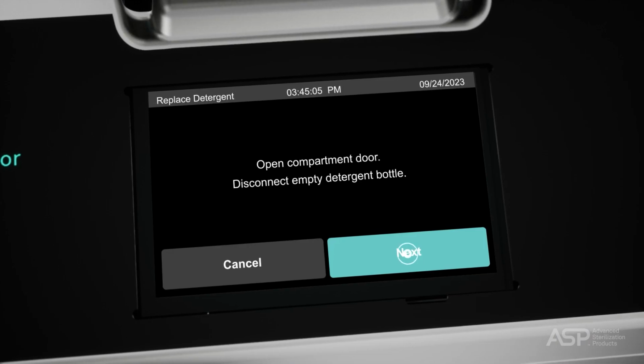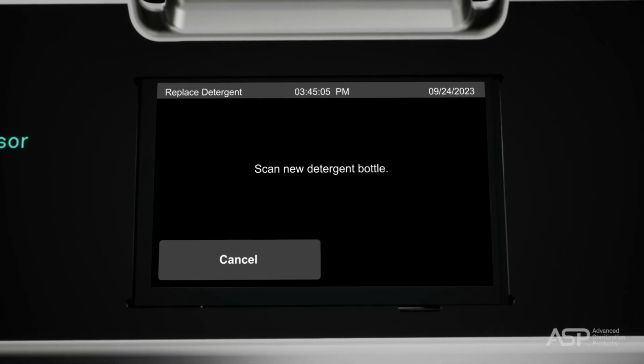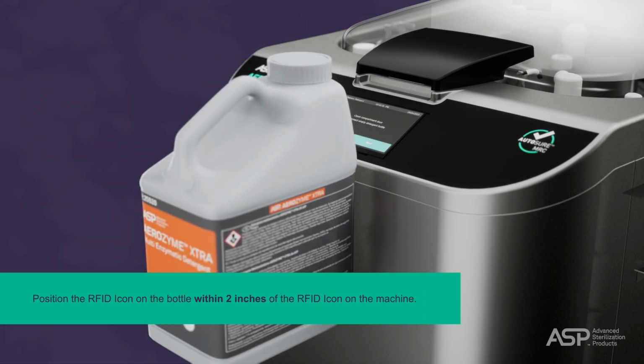Tap the Next button. The screen will prompt you to scan the new detergent bottle. To scan, position the RFID icon on the bottle within 2 inches of the RFID icon on the machine. When the scan of the detergent bottle is successful, the system will beep.